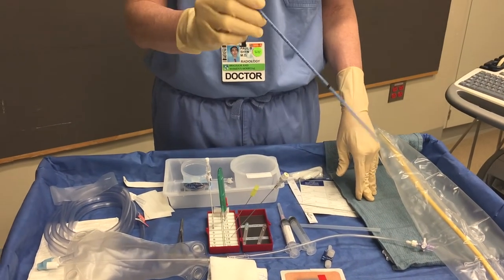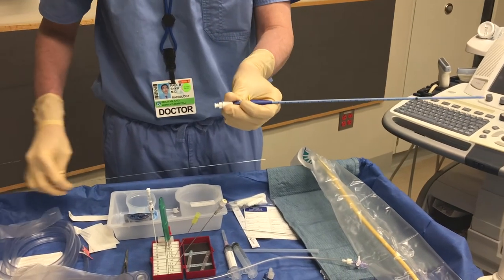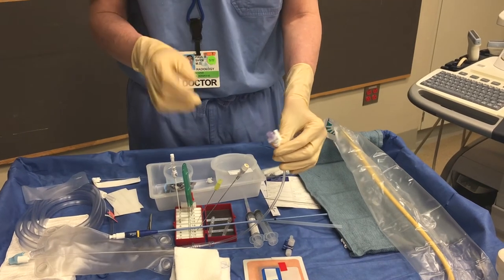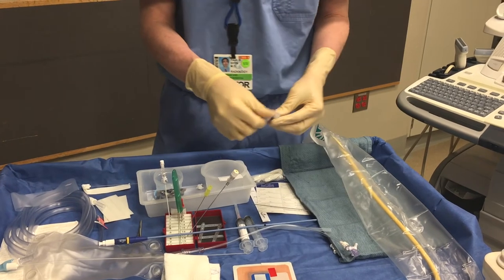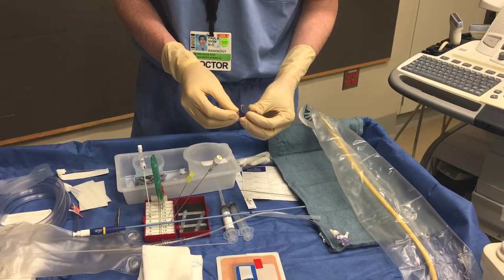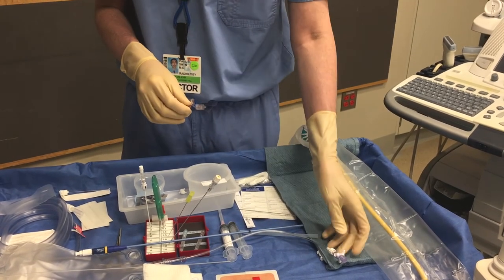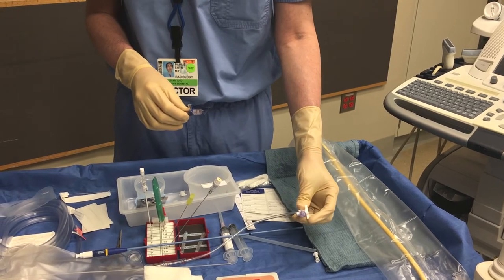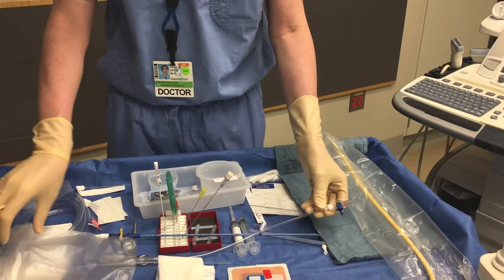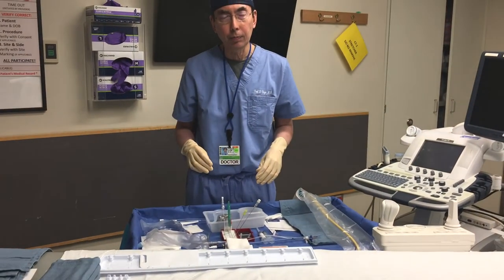The catheter is now ready for trocar insertion with the sharp stylet sticking out. For Seldinger technique, remove the sharp stylet and the catheter is ready to go over a guidewire. Once the drainage catheter is in place, we generally use a three-way stopcock for abscess drain catheters or any fluid collection we're going to drain and potentially irrigate. The exception is pleural collections — especially free pleural collections — where we use a two-way stopcock since we don't usually irrigate those. It's nice to have all of this set up and ready to go before you start your procedure.